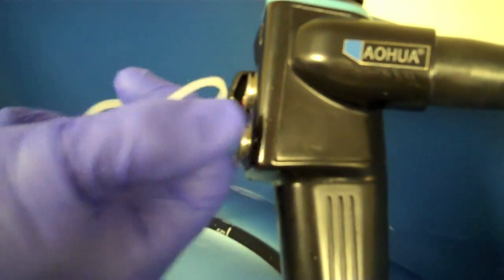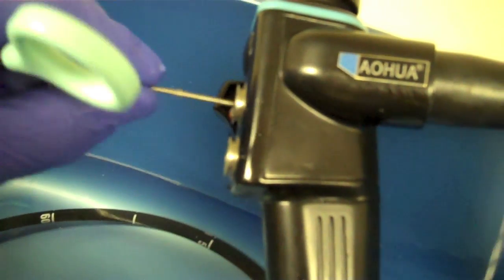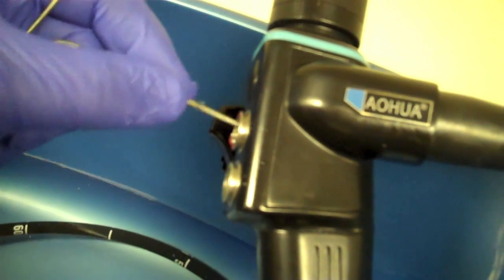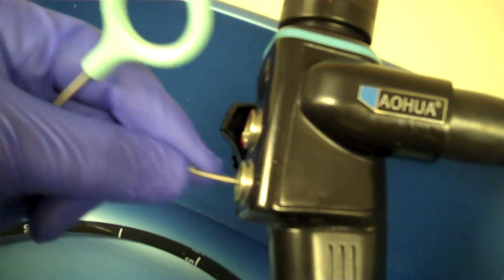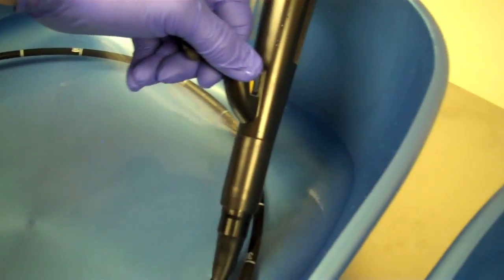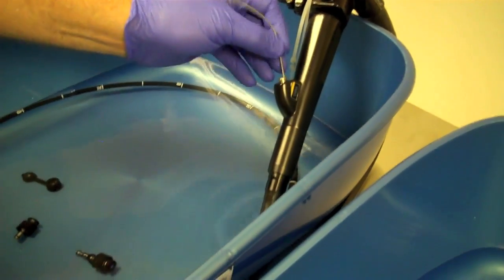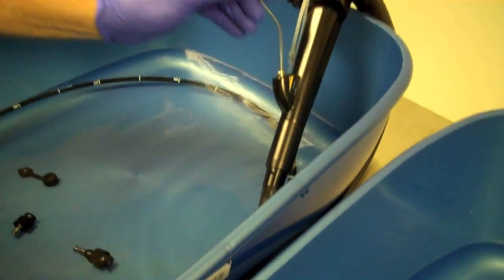Just before syringing through with your enzyme or cleaning solution, just give the ports for the suction a clean. We'll now just give the working channel a clean with the brush too. Just remove the airtight cap and then remove it.